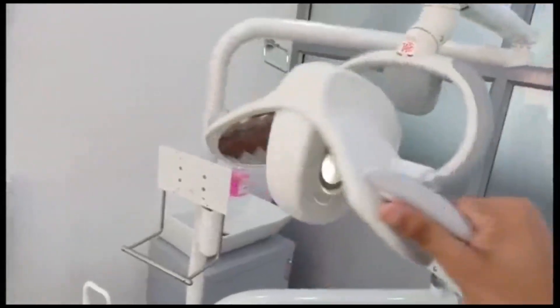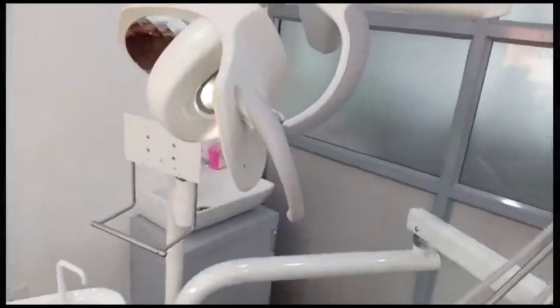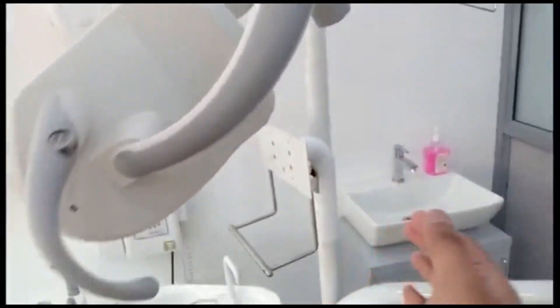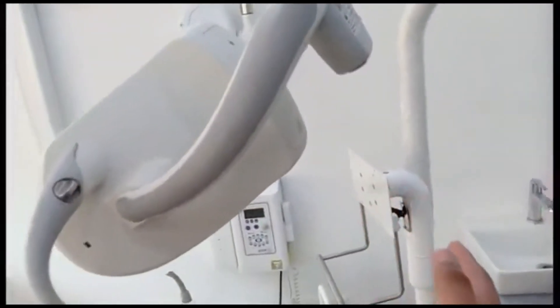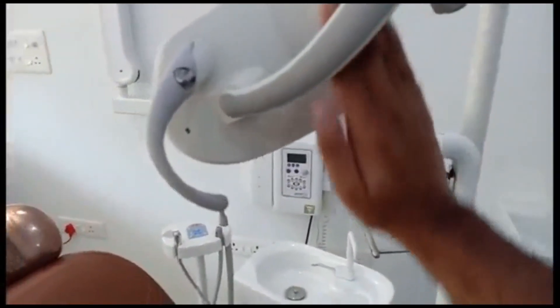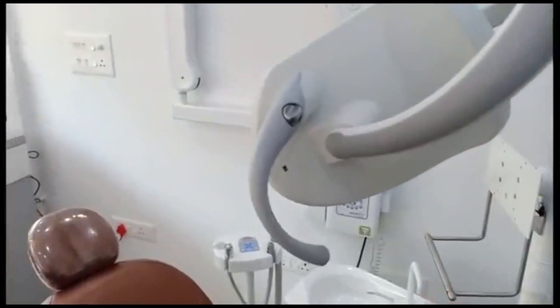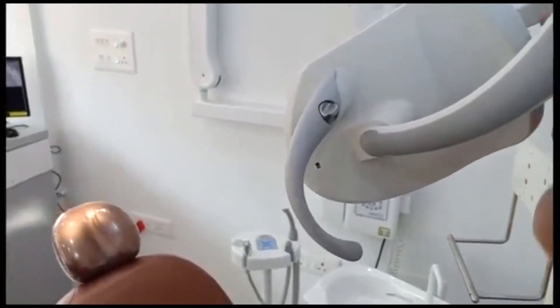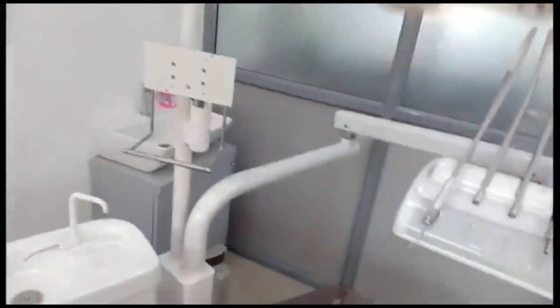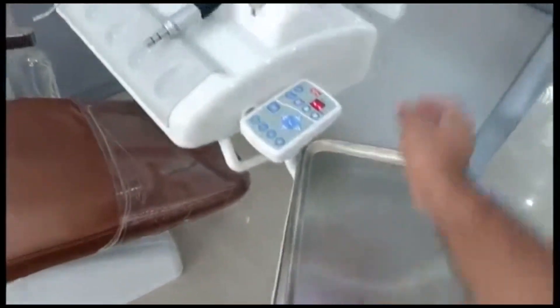Previously the light was operated using a switch, but nowadays, due to infection control requirements, it has a hand signal sensor — we can change it using our hands without touching the instrument directly. This is the handle, and this is the instrument-keeping tray where we can keep our instruments.